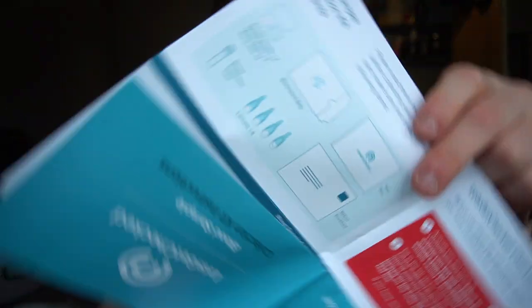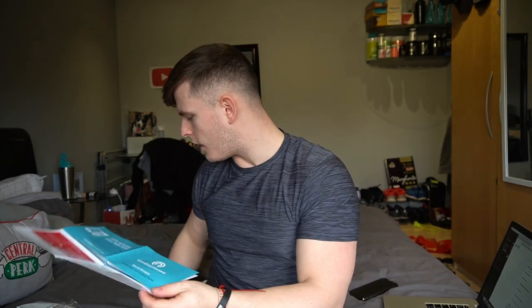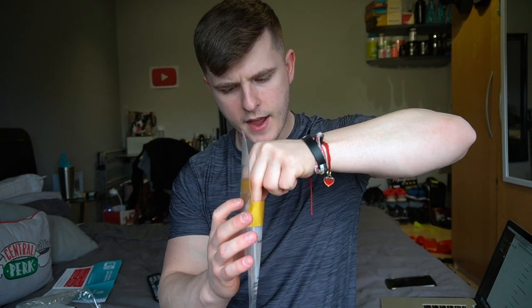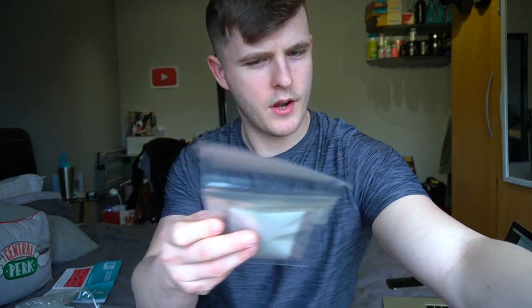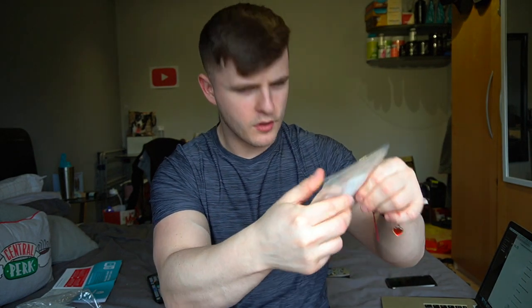This page has been very helpful, guys. You get this little booklet on the inside, and I'm no good with what things are really called. With the swabs and all of that, I don't want to get the wrong things, the wrong name. So this page actually tells you what everything is and where everything should go, as well as having the laptop by my side — or you could just use your phone. Pretty obvious that this is the biohazard bag. So pop that in there like so. Take that off, fold that down — and we should be good.